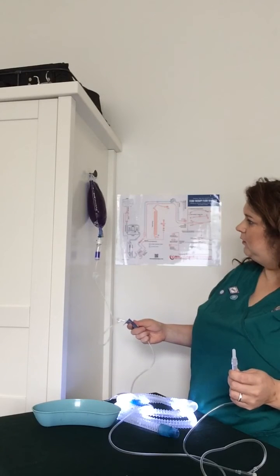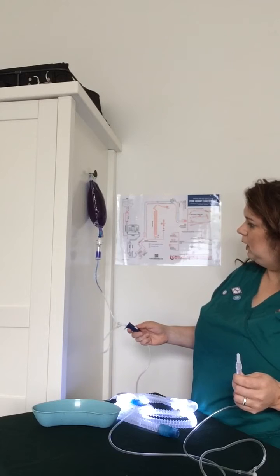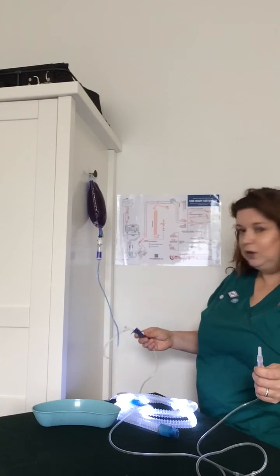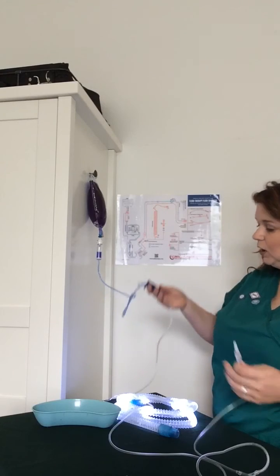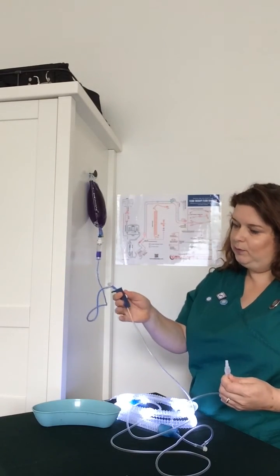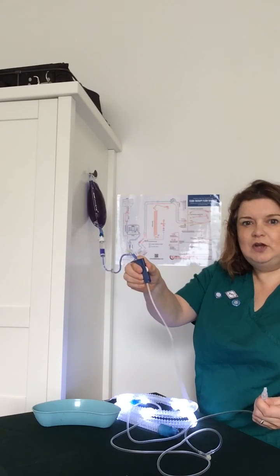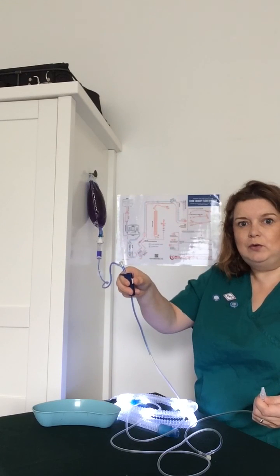So that's halfway open with the regulator — it's quite a stiff one. Okay, bubbles are going. You can see this coming down through. We're about to hit the regulator and we're going to slow down there, because that's the tightest part. So we're going to open it just a shade further there. And you can see the blue.